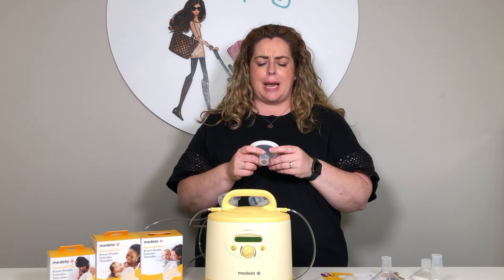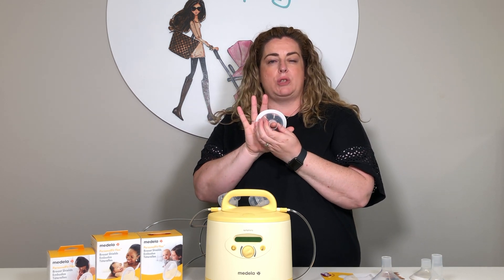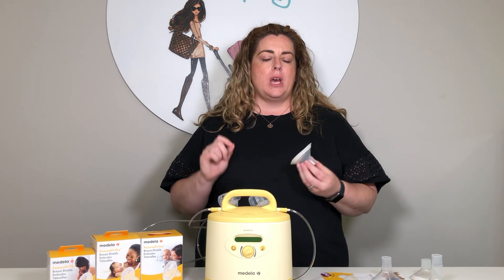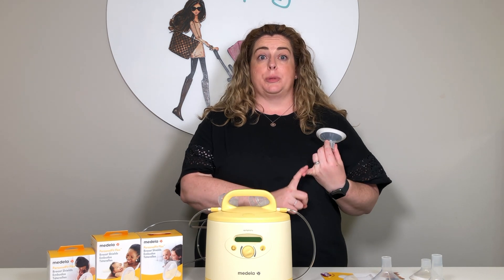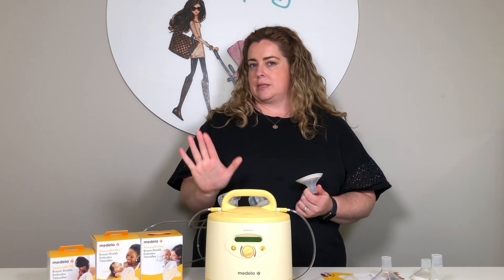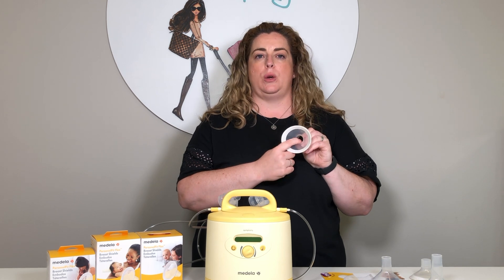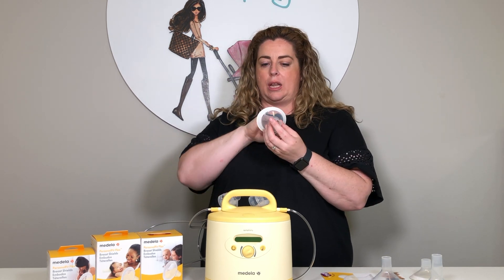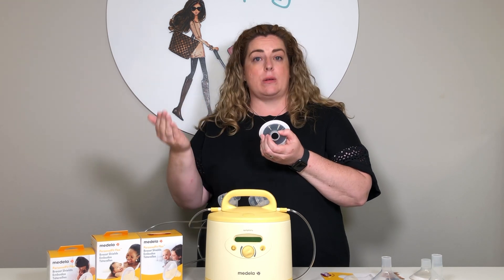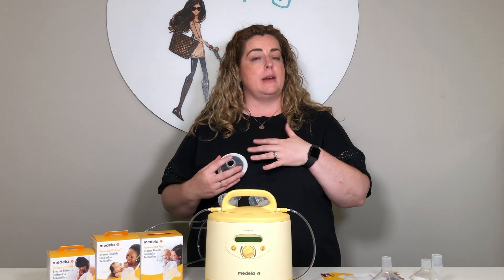If you're in a store you're maybe not going to want to do that, but here we have a 21mm with a finger inside — I'm just doing this for demonstration purposes. When your pump comes with the size it comes with, test it out and see if you're comfortable. Some red flags to look for: discomfort first and foremost — though that could also be due to turning the suction up too high too quickly, so make sure it's not a suction issue. If you are rubbing or chafing off the side of the breast shield, it is too small. Equally, if your nipple is floating in a lot of thin air — as I'll show with my little finger — it would be too big and you'd need to go down a size.